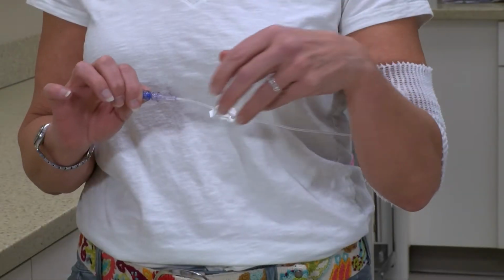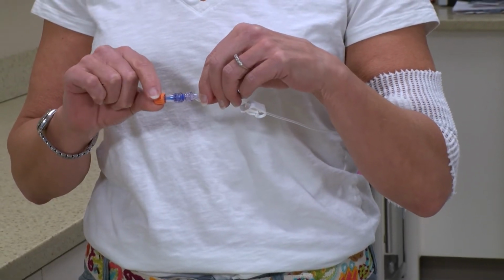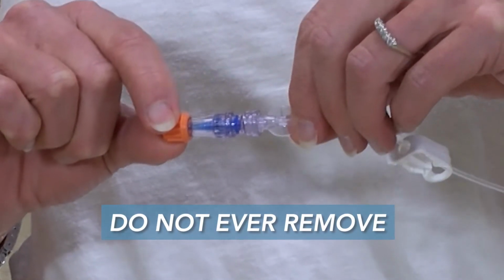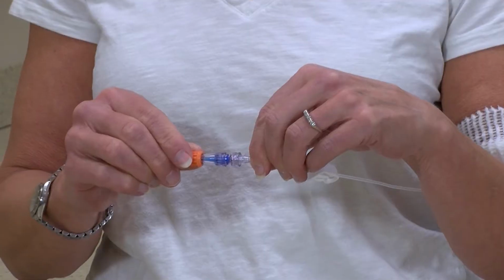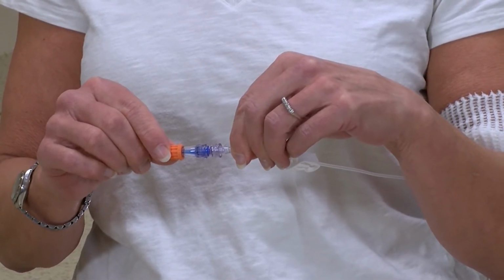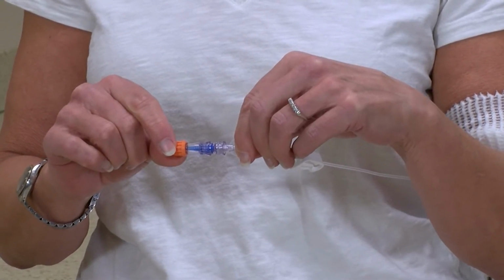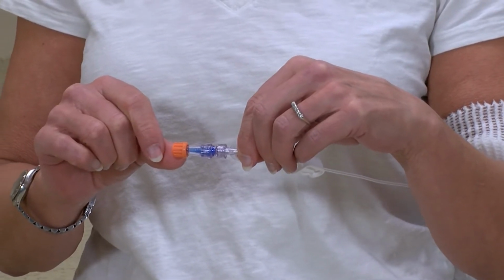At the end of this extension set is a small device that is referred to as an end cap or an injection cap. This cap is where you will attach your medication tubing or syringe. Do not ever remove this cap. At the end of this injection cap, you might see yet another small cap that is referred to as a swab cap. This is an extra measure to keep the end of your injection cap clean in between your medication times.